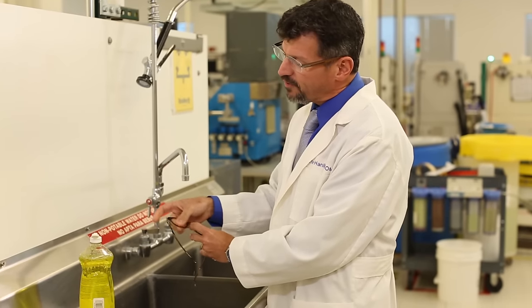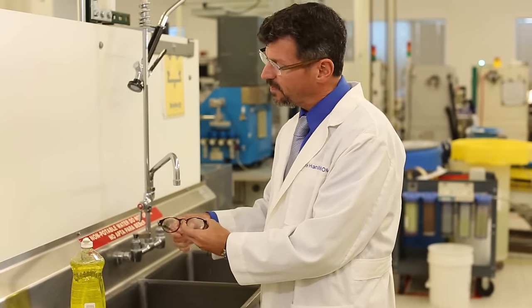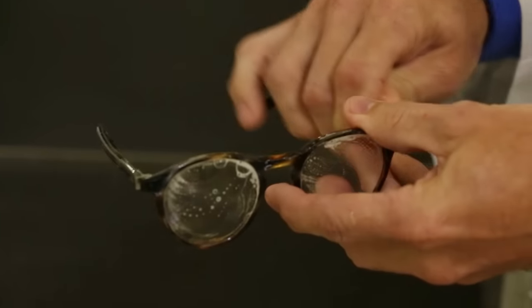Just switch them around with your fingers right there on the lenses. Get the temples and rest of the frame nice and clean.